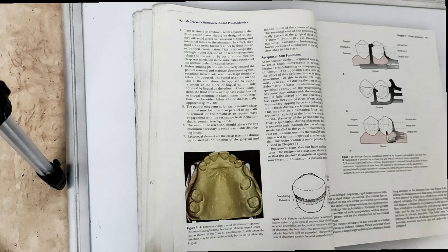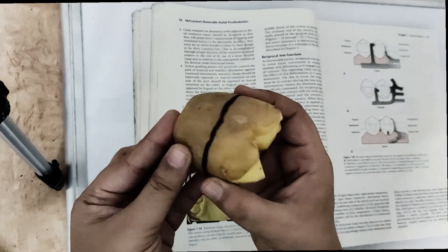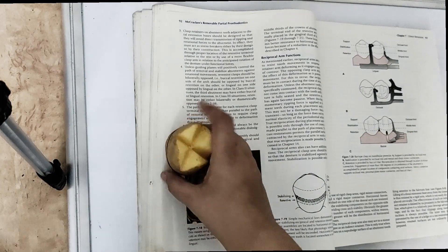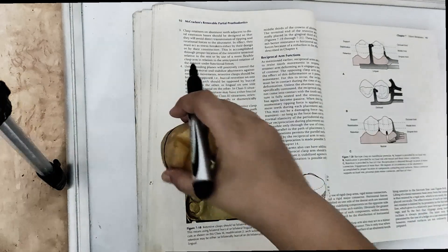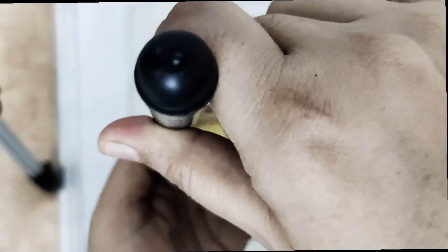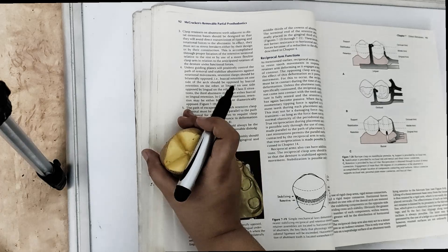What are the components of a clasp assembly? Basically, the clasp is retaining the tooth. This is the occlusal view, and this is the gingival view. Once we have surveyed from the surveyor using the carbon marker, the highest point will get marked. Both sides are marked — this is how the line is going to come. So first of all, we are going to mark the height of contour in the surveying.